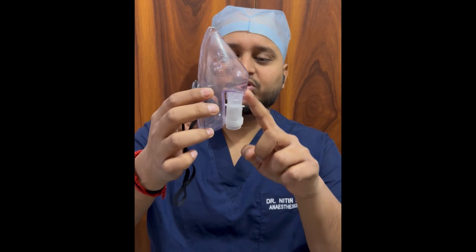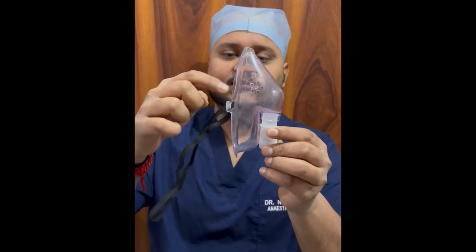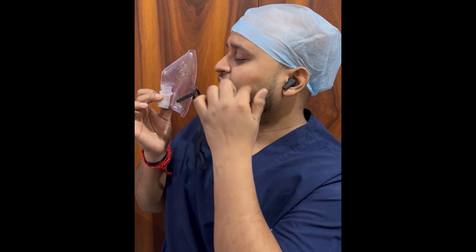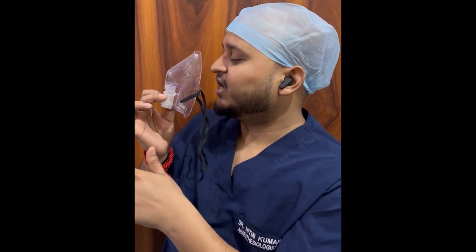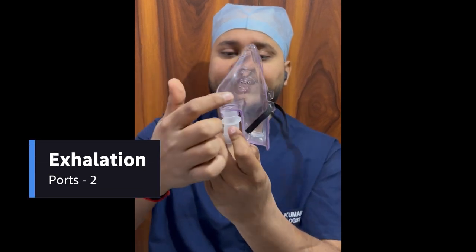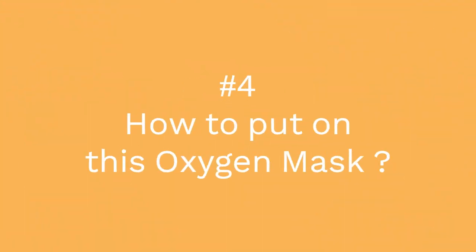From here the oxygen goes upwards and the face of the patient is here. Air comes in from here and the patient inhales oxygen. When the patient exhales, carbon dioxide comes out from the exhalation ports — it has two exhalation ports on the sides.